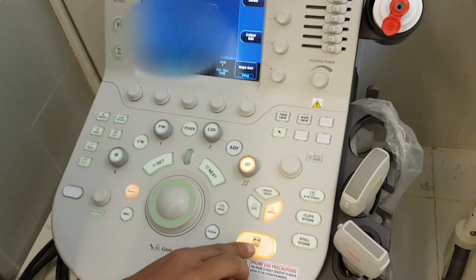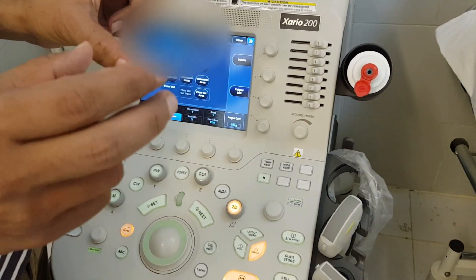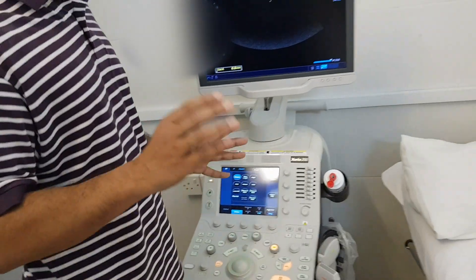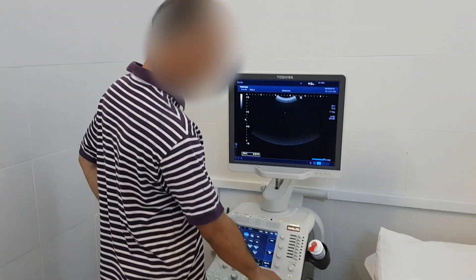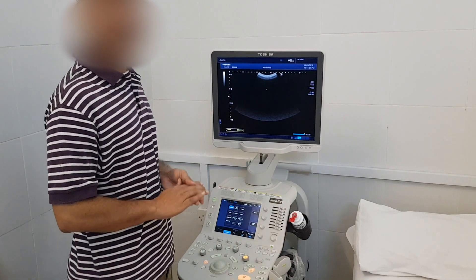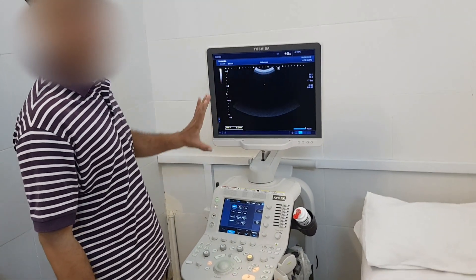Look at this button — this button is freeze. Because the ultrasound probe and crystals are continuously in motion, if we want to stop the motion, we press freeze. When freeze is pressed, the last image where we kept the probe will be displayed here.